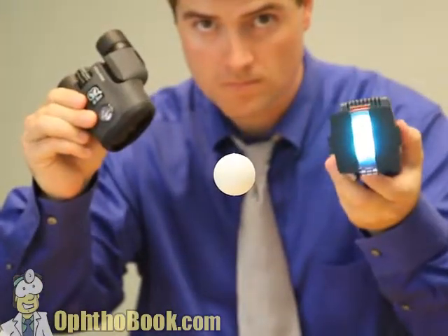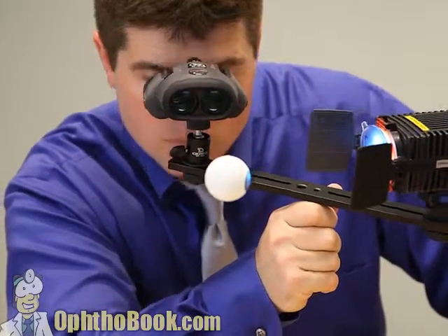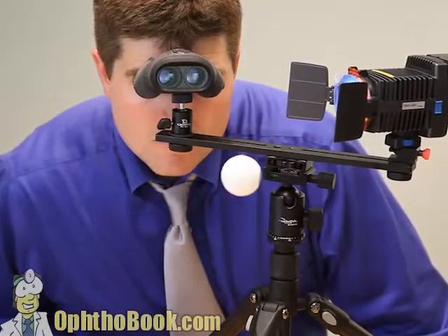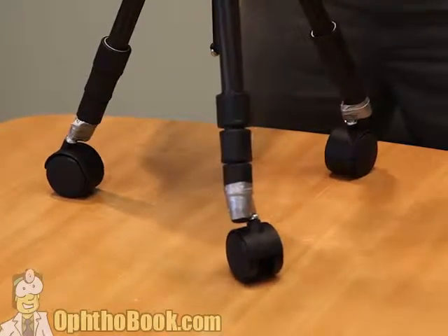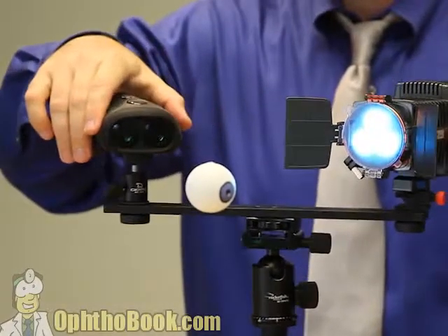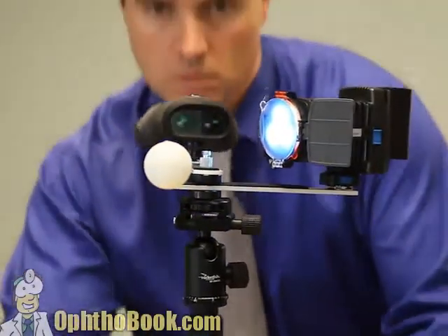We have a perfect microscope and a perfect light source, but how do we use them in synchrony? It's very hard to focus them independently. You can put them on a bar so they're in focus at the same point at all times. Then put on a tripod — stable, very little movement. Add wheels to the bottom for mobility. And finally, create a hinge mechanism so we can move the light in relation to our scope while they remain in focus at the same point. This is basically the perfect modern microscope.